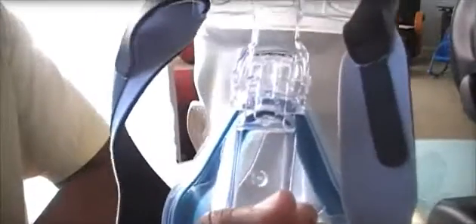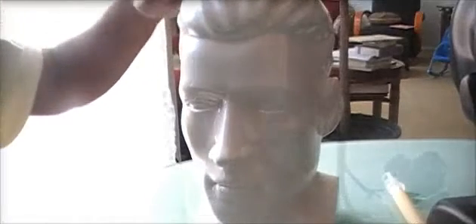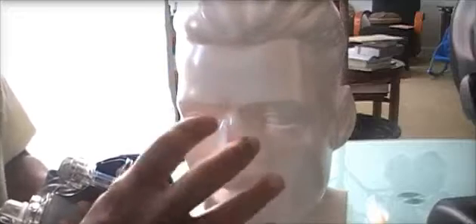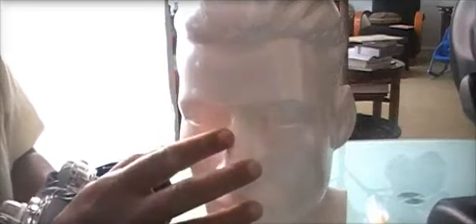For instance, I was showing you this comfort gel full face mask. Give yourself a break and try a totally different type, like this hybrid mask — it covers your mouth and nose. So if you're bruising in one area, every few days try one of these. Or if you're using a gel nasal mask, try a different brand or go for nasal pillows. Give your face a break where things normally touch — try not to put a mask where it touches that area, so it has time to heal.